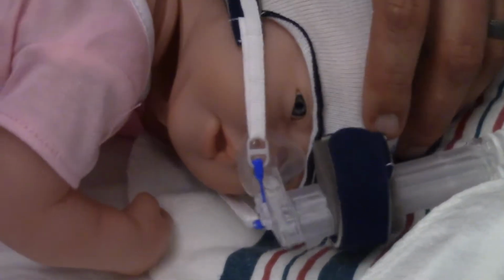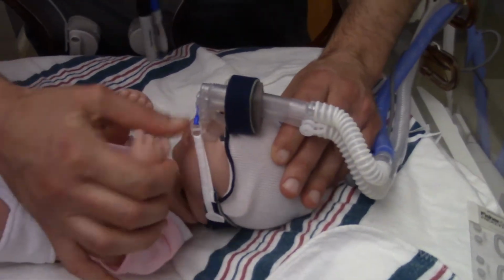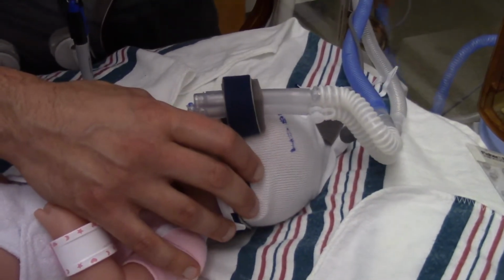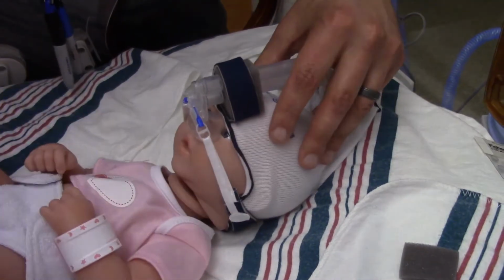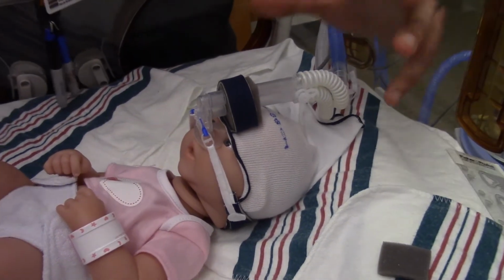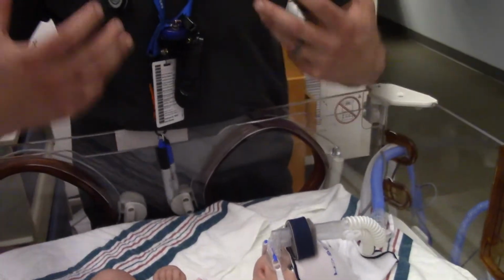Okay, so some troubleshooting on this thing. Babies cry, and as Brian correctly was stating, we all make a physiological peep. So if you have an older gestational baby, say a 35, 36, 37 week baby, and they're still needing CPAP for that transition period, they still have enough strength to cry and create that auto peep.